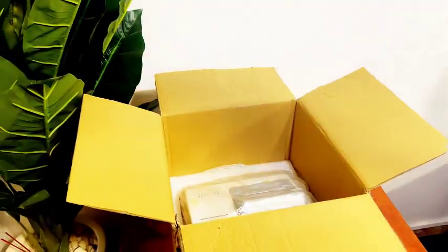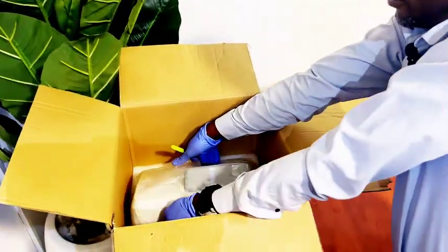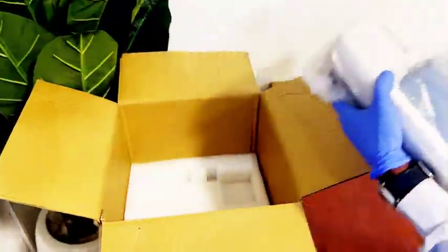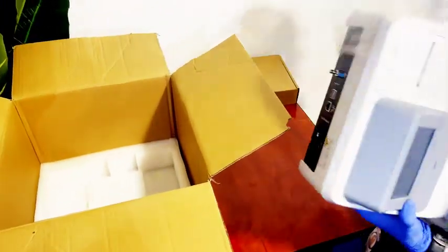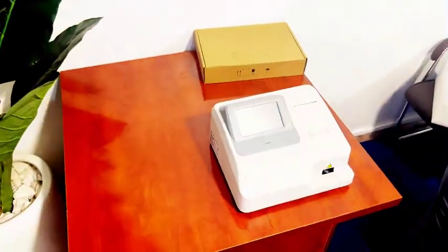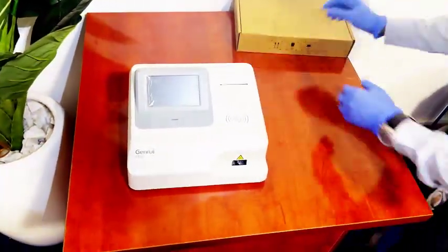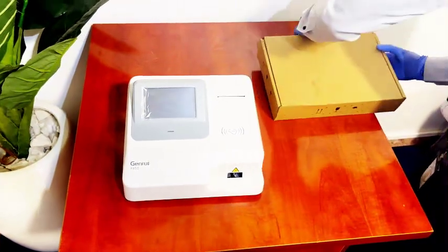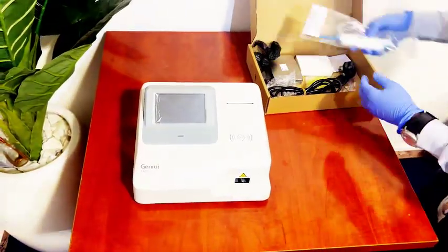You have to tilt the machine to one side to remove the packaging. This is our machine, and this is our packing list.